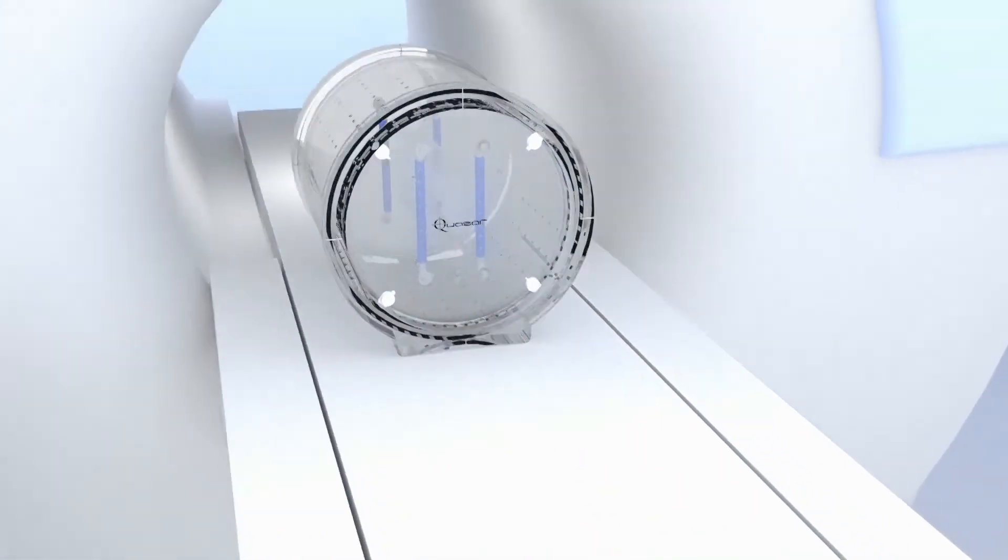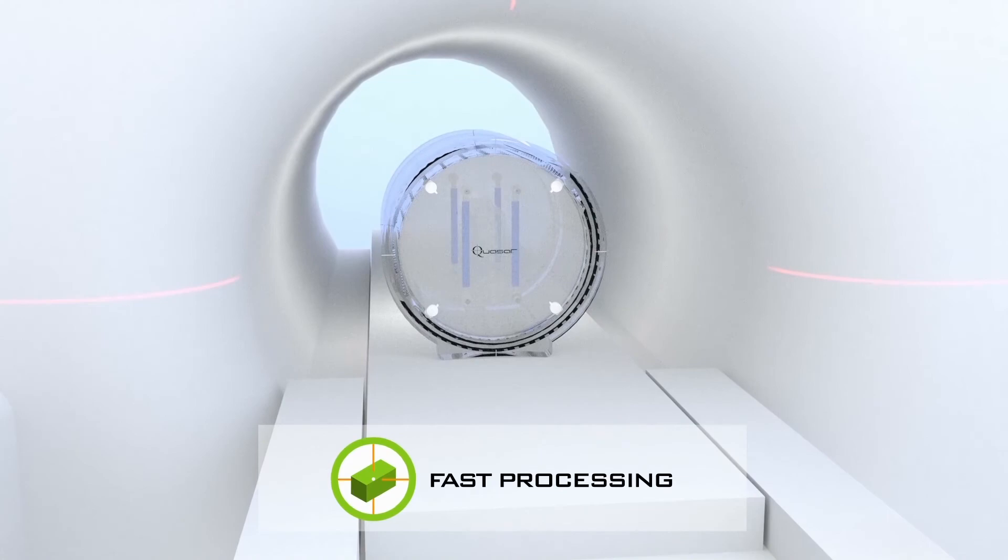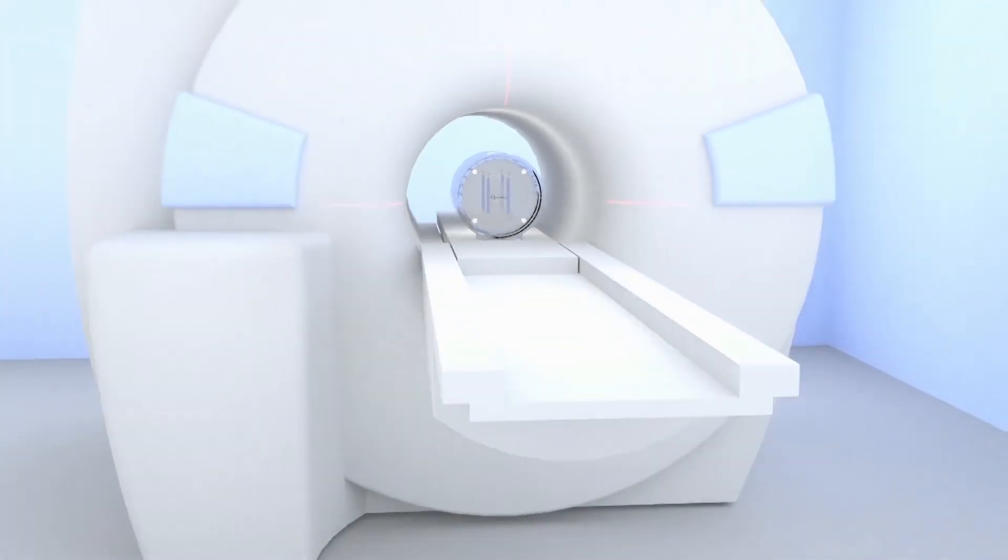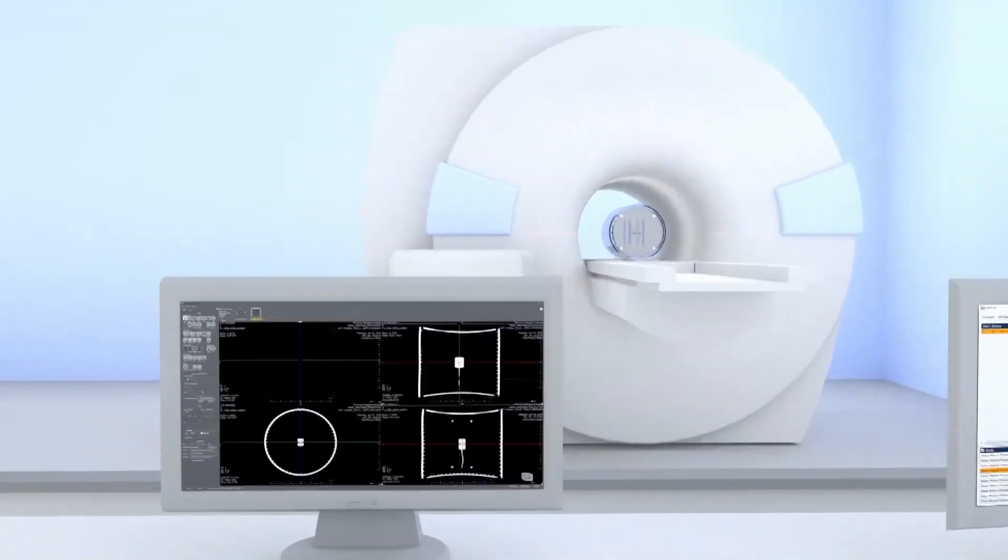With MRI-D 3D, you are able to acquire T1-weighted 3D isotropic GRE scans at 3T in under 5 minutes or at 1.5T in as quick as 10 minutes.